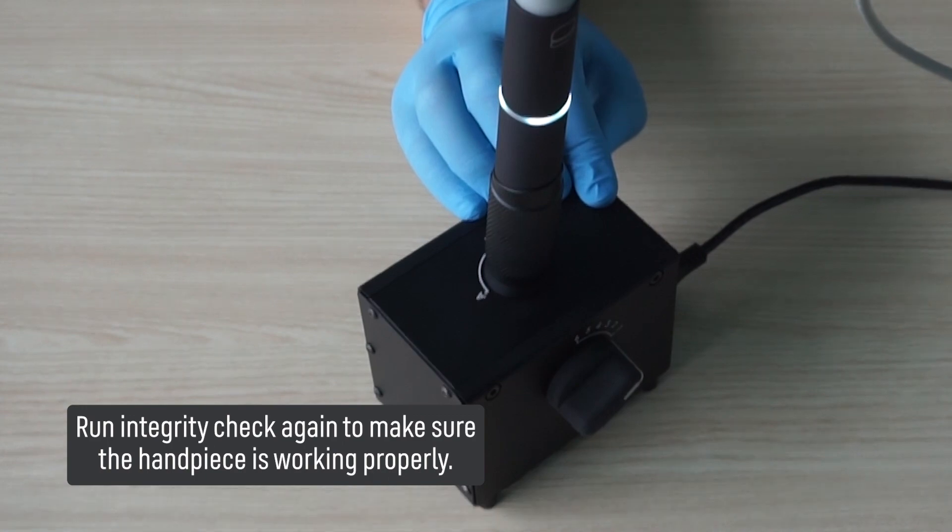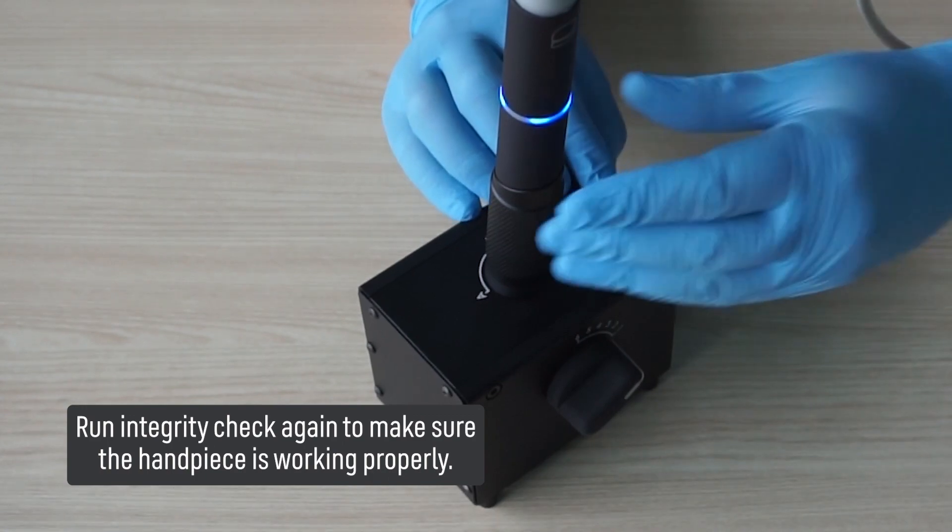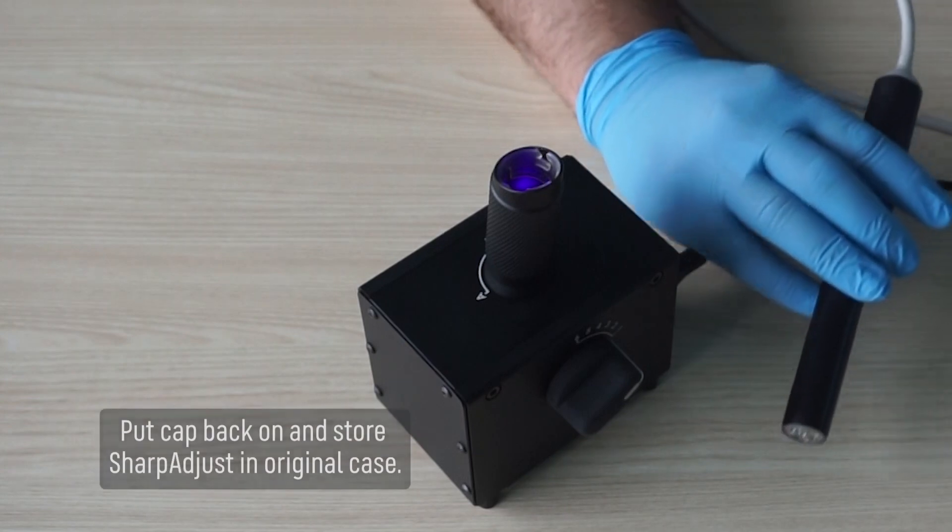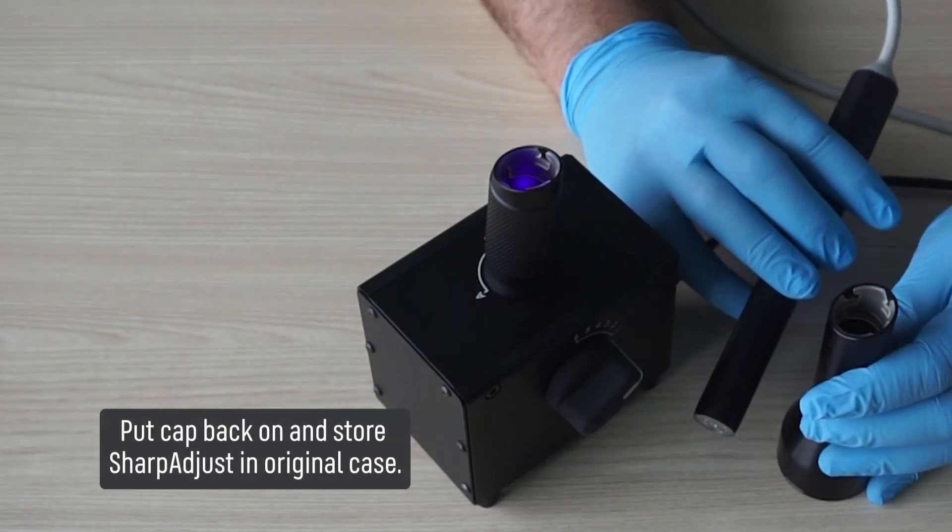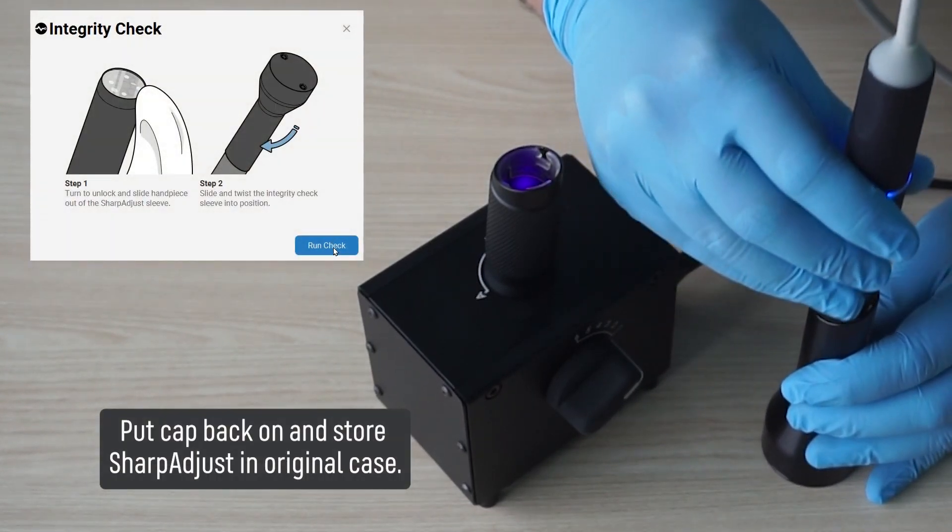Run integrity check again to make sure the handpiece is working properly. Put cap back on and store Sharp Adjust in original case.